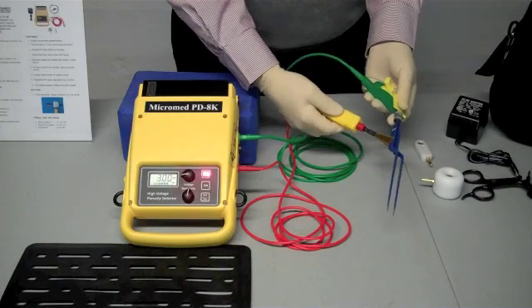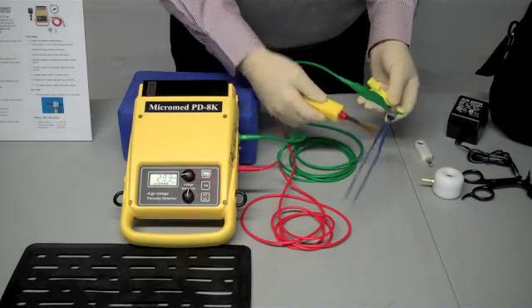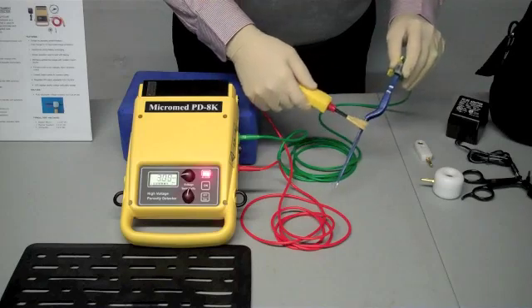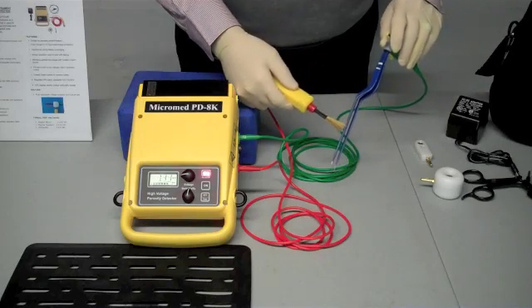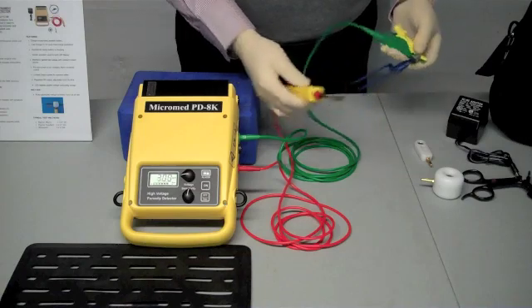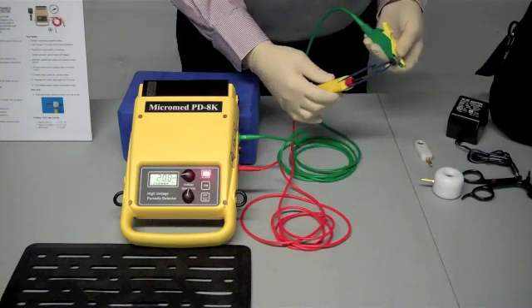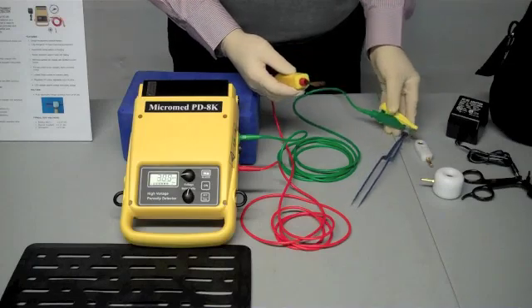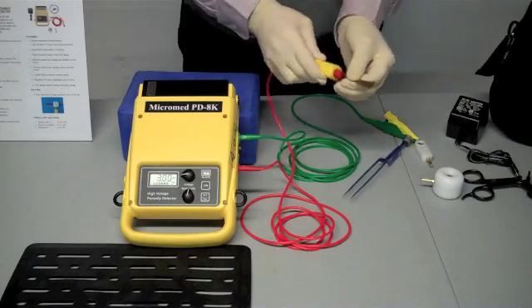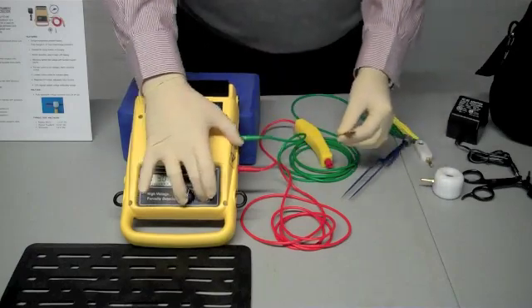You'll go through each side looking for a pinhole. There's another one there. And on both sides you can find different ones there. This unit should probably go back and get repaired at your repair facility. Again, mark and put away for later repair. Turn the unit off.